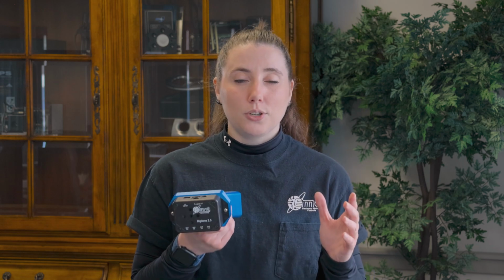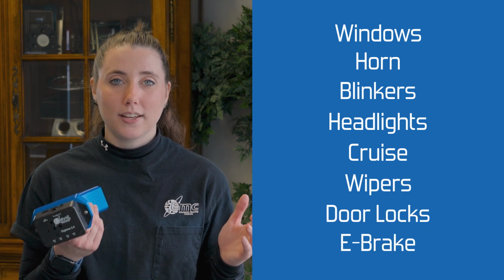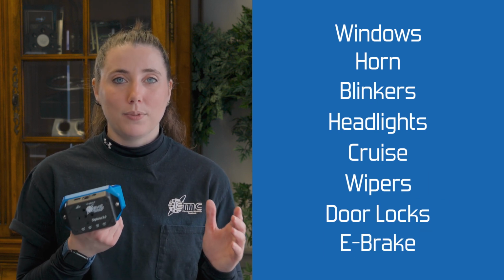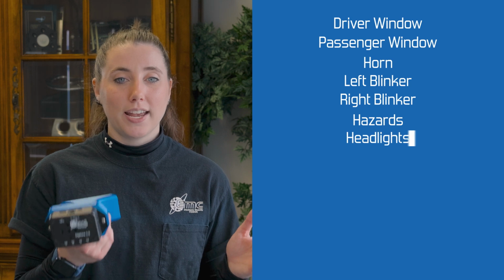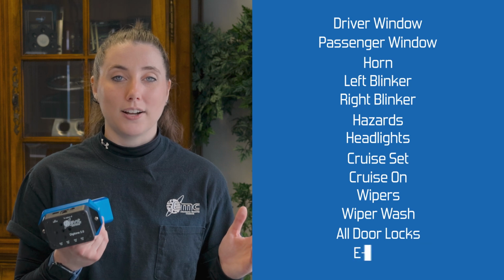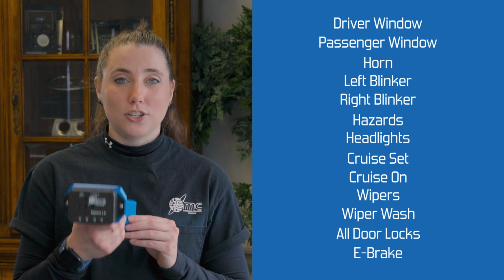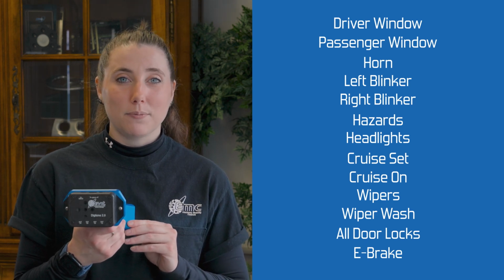When you're setting up the digitone, you have to understand how the secondary functions are configured. We've had people call and ask for windows, horn, blinkers, headlights, cruise, wipers, door locks, and e-brake. Now that sounds like 8 functions, but they actually asked for about 13. To break it down, they asked for the driver window, the passenger window, the horn, left blinker, right blinker, hazards, headlights, cruise set, cruise on, wipers, wiper wash, all door locks, and the e-brake. It can be a little confusing. So when you're prescribing the digitone, make sure you talk to our EMC sales team about which functions you want to program.